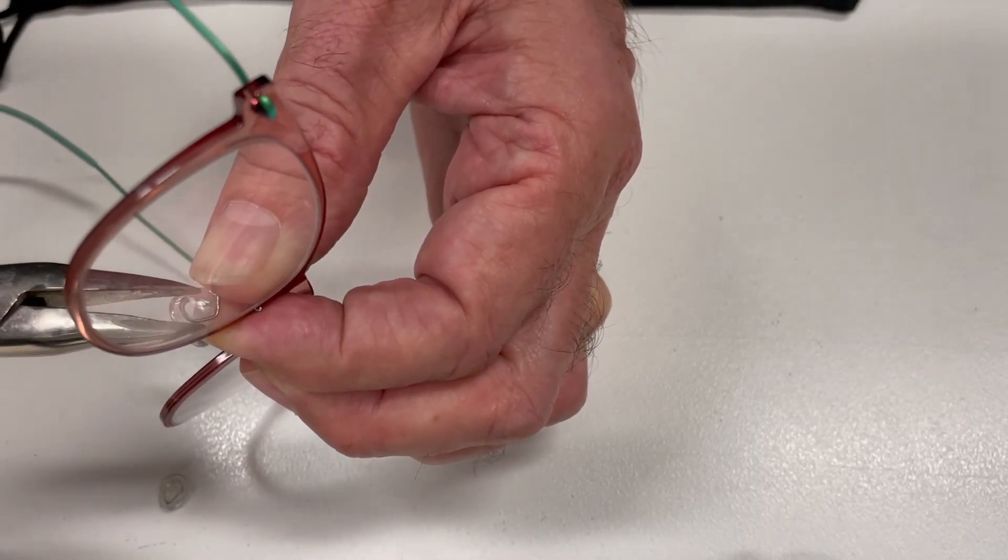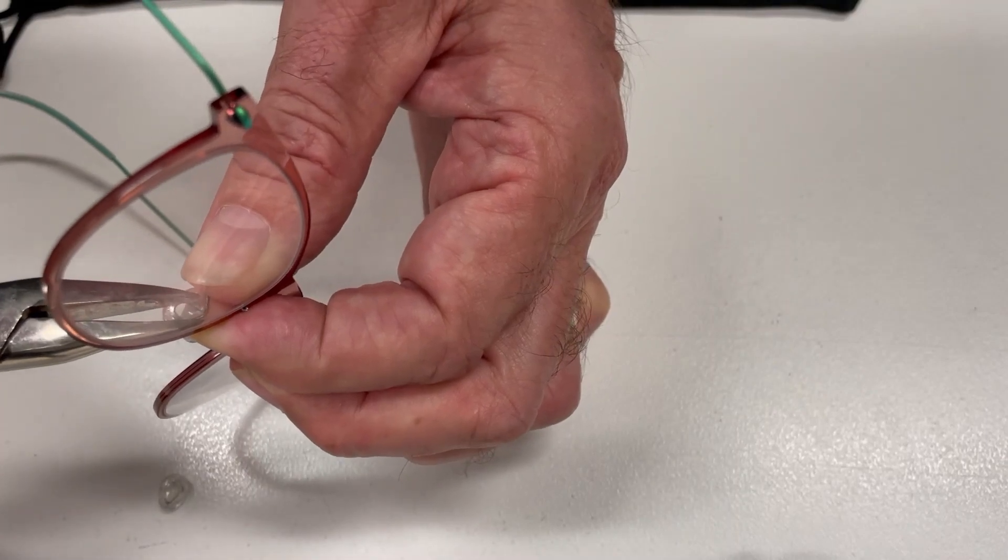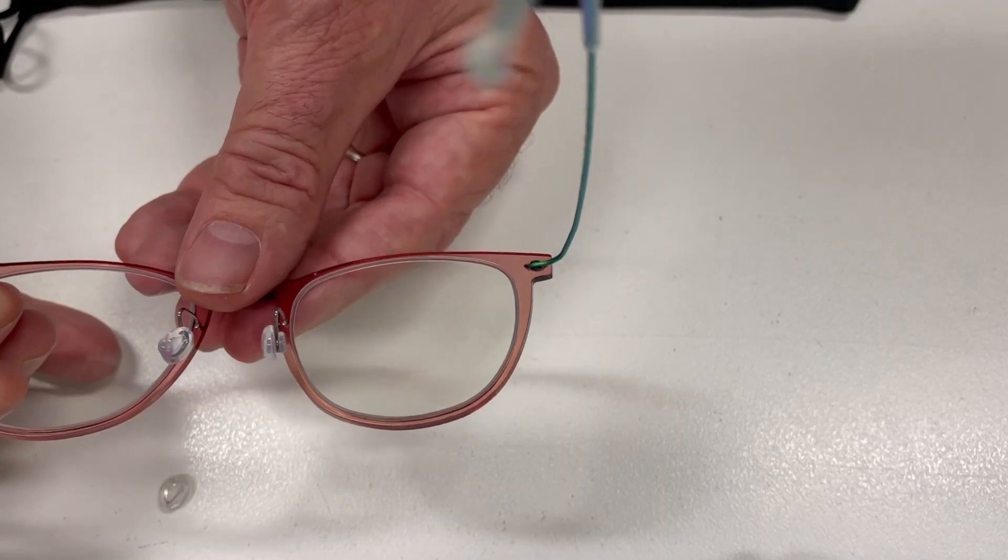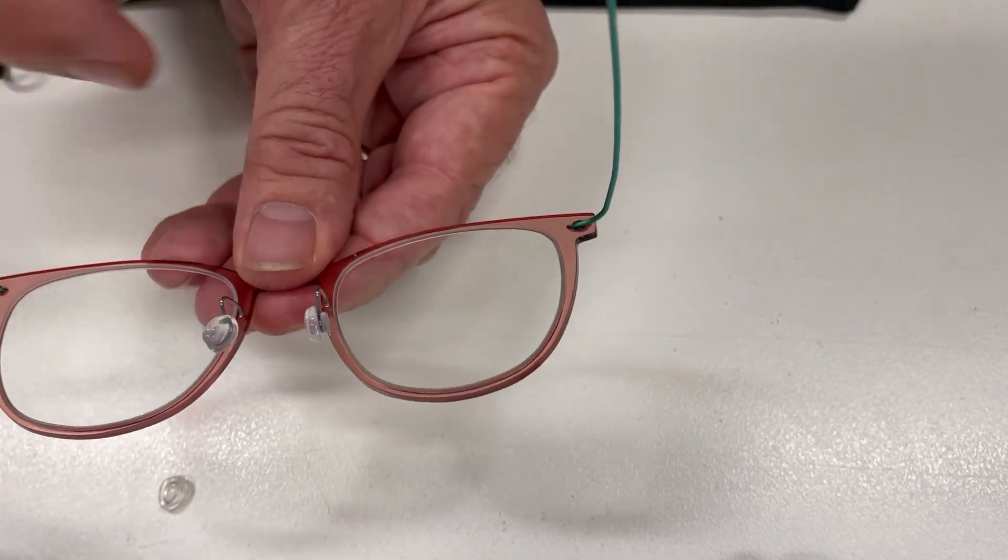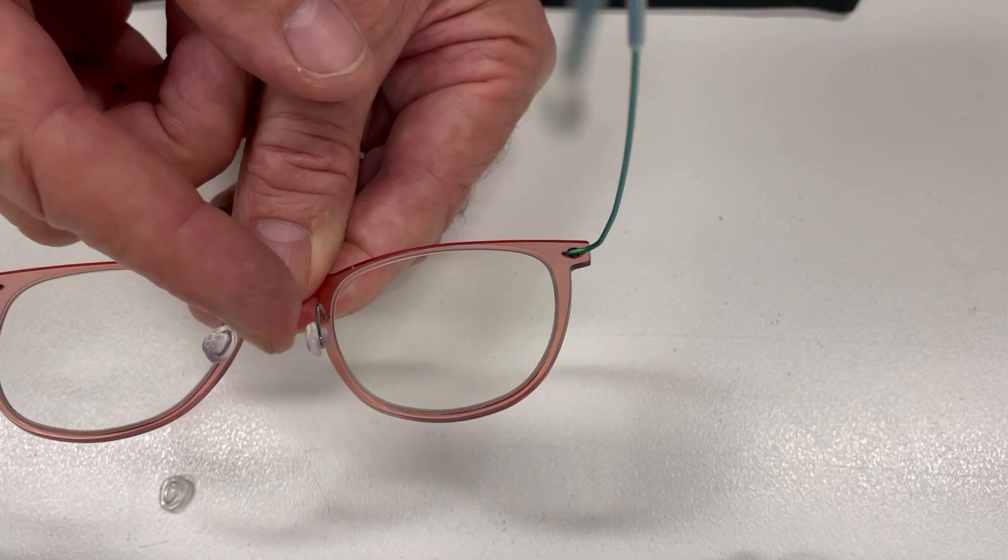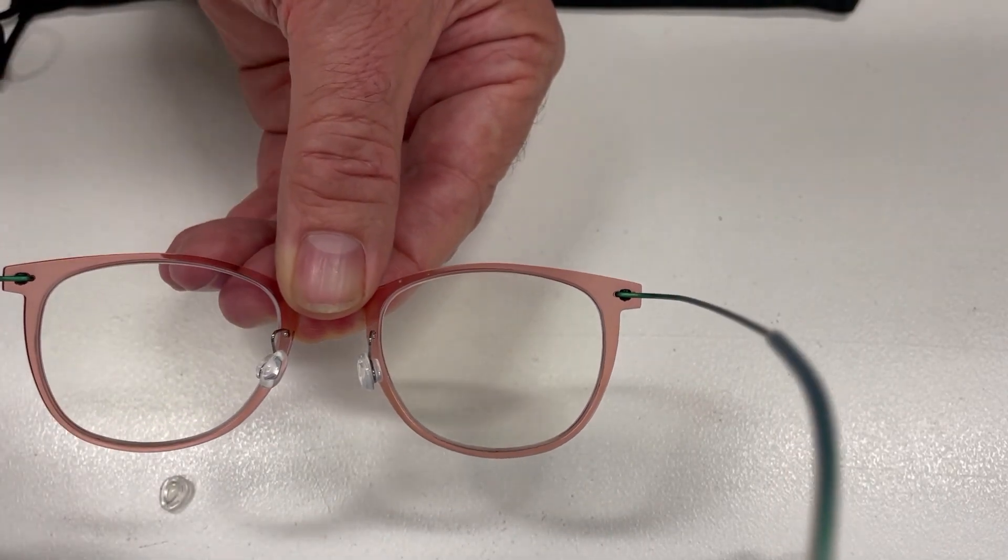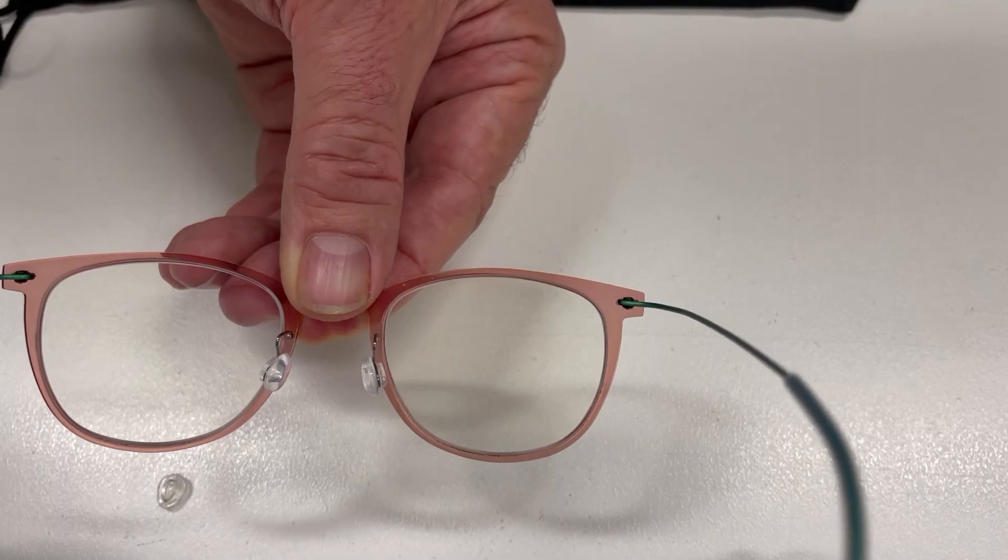Once you've squeezed it tight, they'll be in there quite firmly and comfortably, and they'll obviously look a lot better. You can widen those out if you need to. And that's pretty much how to change the Lindbergh nose pad on the nail frames. Cheers.